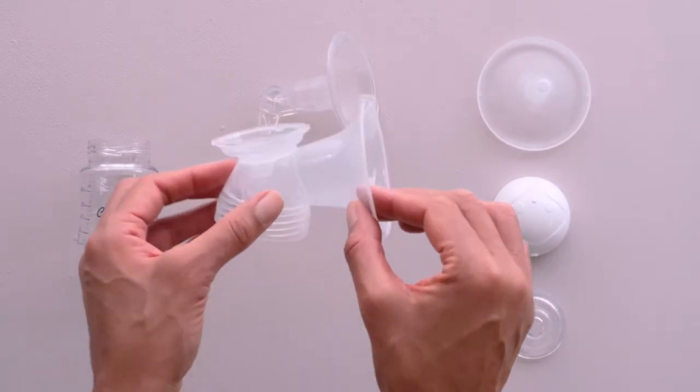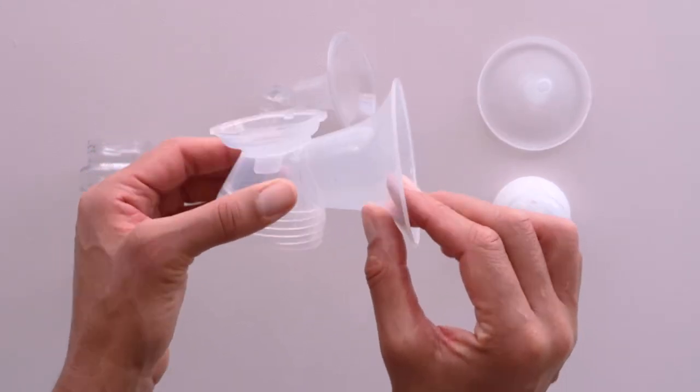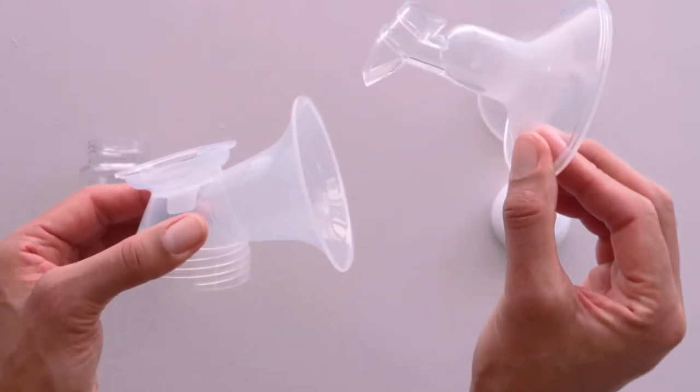How to Assemble your Crane Breast Pump. This is the milk collection kit. We've made it easy to use and simple to clean.